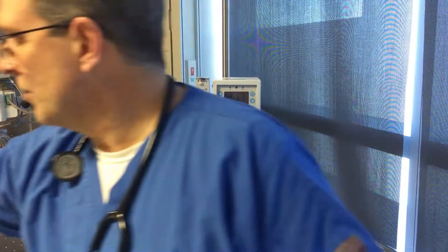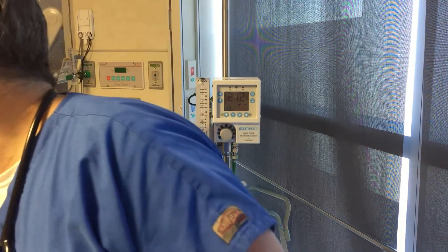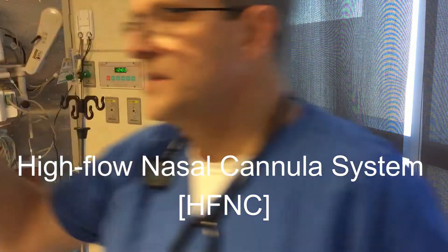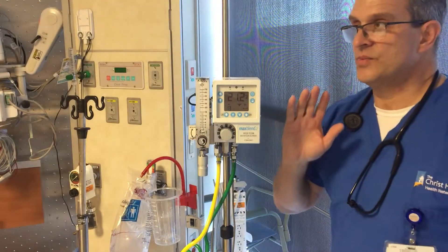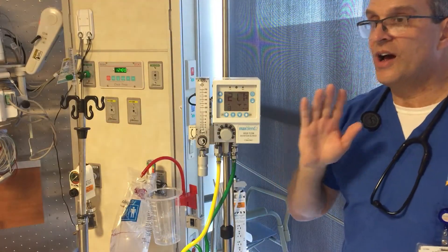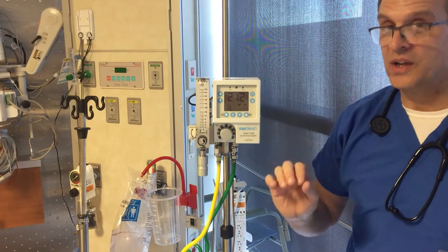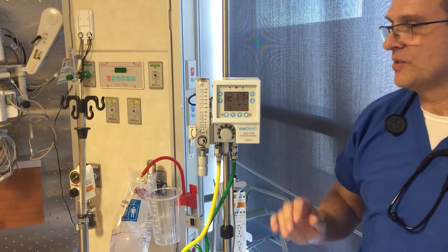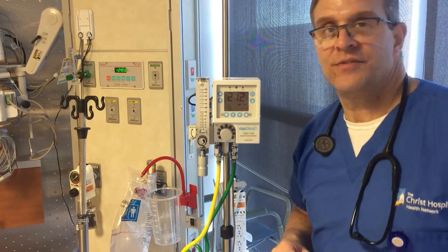Then we get to what we're going to be talking about today: a high flow nasal cannula system. This one is called a high flow nasal cannula system because it can really run at high flows — really high flows. In fact, this flow meter goes up to 70 liters per minute.